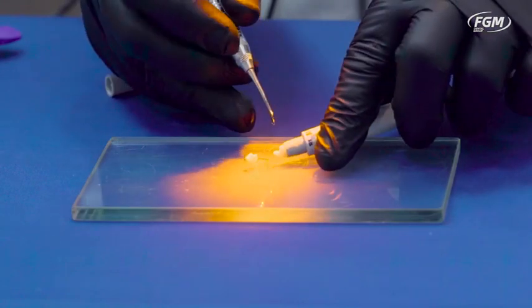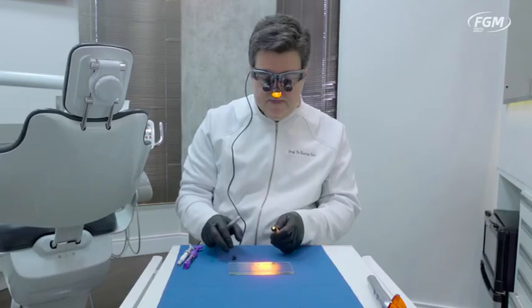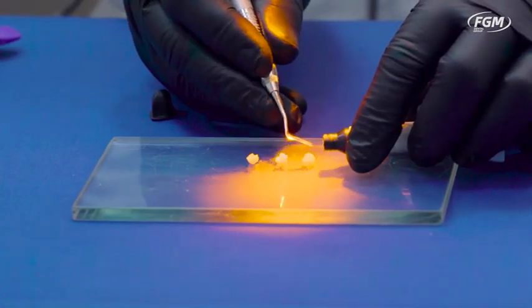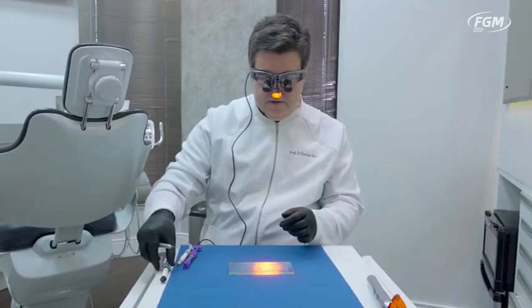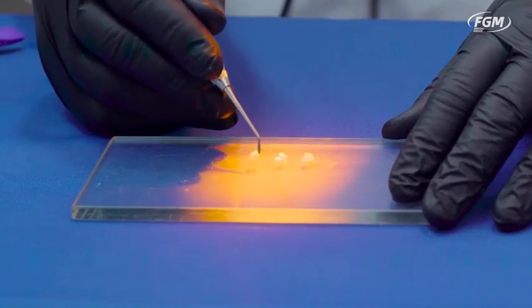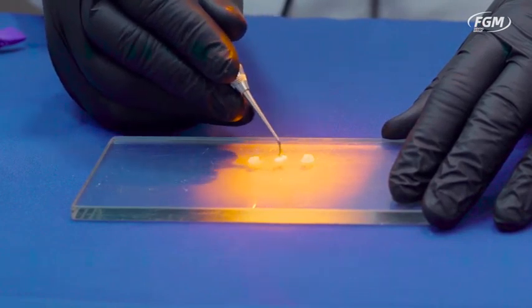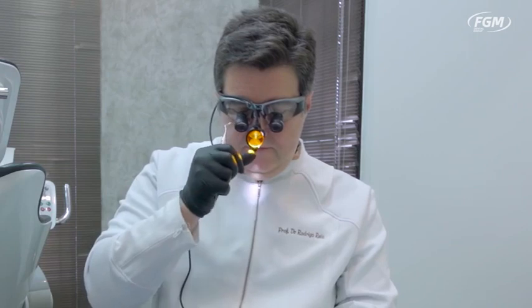So we're getting another brand of composite, approximately the same amount over here. Trying to keep as much as possible the amber filter towards them, and getting a third brand. We're going to check for plasticity on all of them. Accommodating them fairly close to each other — all having adequate plasticity.